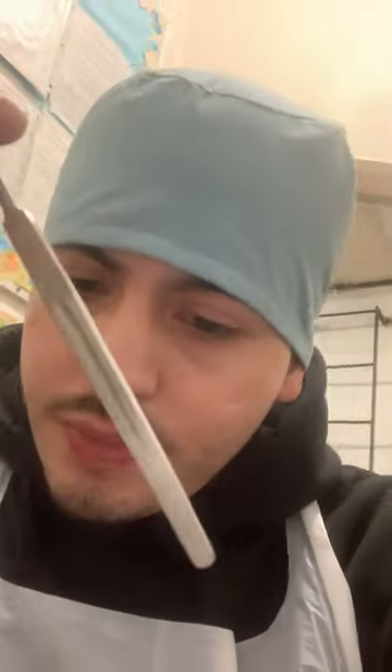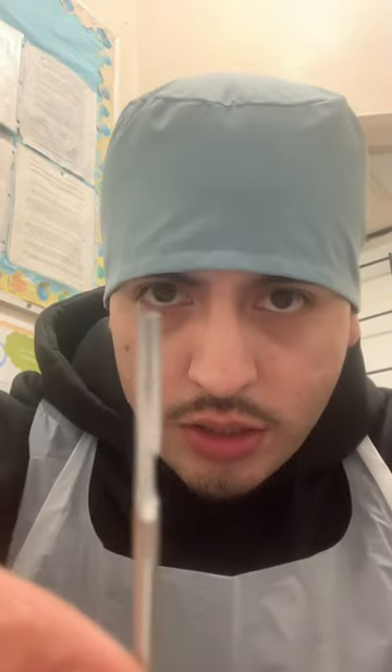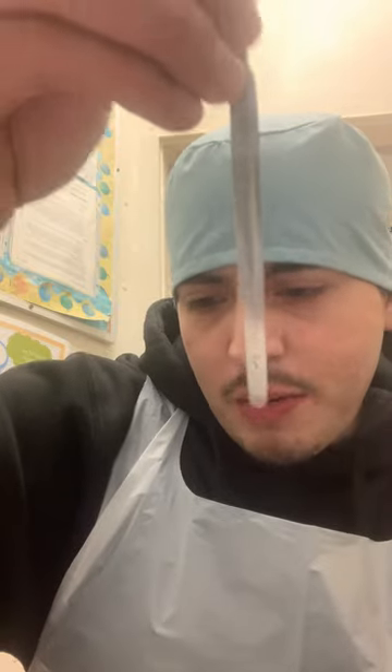The third instrument right here is actually a knife scalpel handle. What I noticed is it has a little rigid notch right here. Since it says it's a knife scalpel handle, maybe it holds a little scalpel or some form of scalpel. It has a seven at the bottom, so I think that might be the size. I think this could be used for cutting tissue — maybe general surgery. I'm for sure going to look forward to knowing what this is used for.